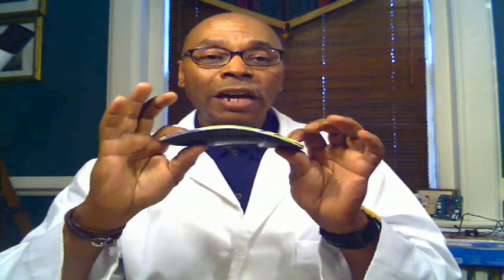The third item I have here is a custom-made orthotic. It functions very much like the arch support in the sense that it's very rigid, but the difference is that this is actually custom-made for a particular individual through a casting and molding process, then fabricated with certain angles designed into it to affect how the foot is going to operate. With this type of device, you typically will need a doctor's prescription, which can be filled by someone such as a pedorthist, your podiatrist, or an orthopedist.